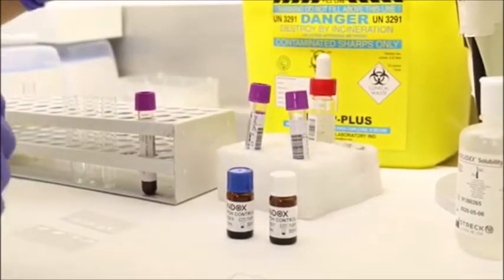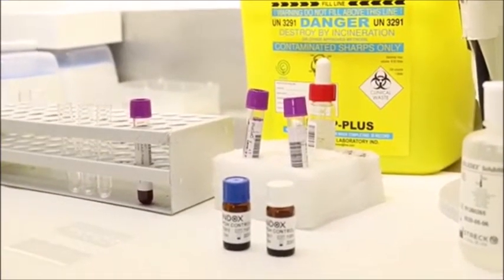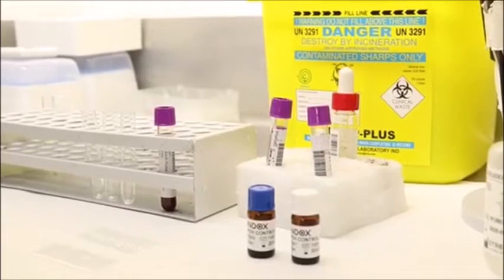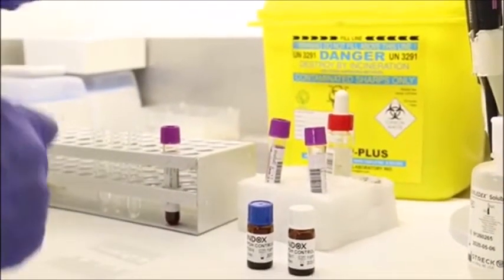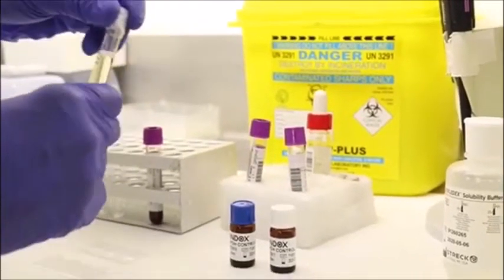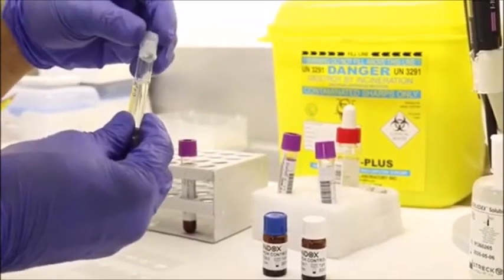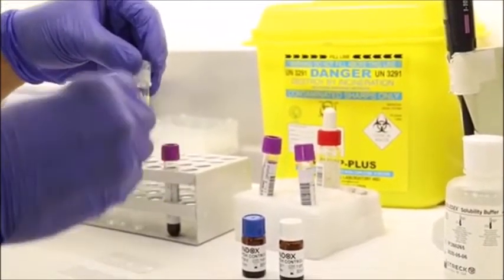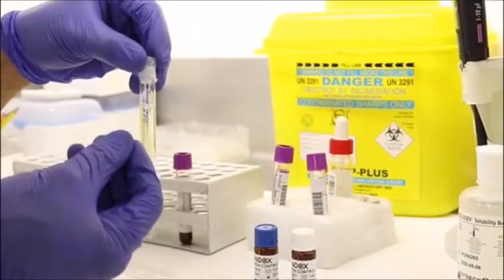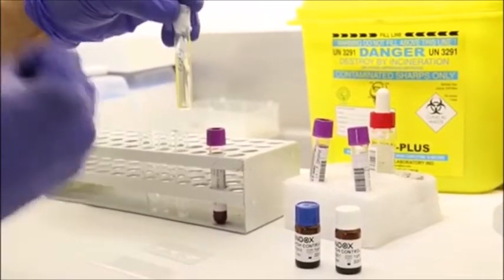as you know, the G6PD enzyme is located inside the cell, and so we need to liberate the enzyme outside of the red cell. So the reagent that we are going to use is basically a buffer that contains the necessary cofactors and ingredients on which the G6PD enzyme will act, such as glucose-6-phosphate and NADP. These are commercially prepared.